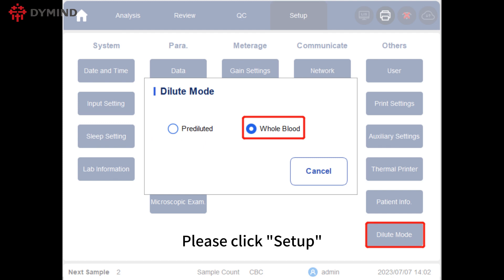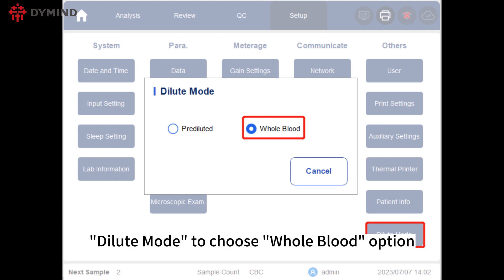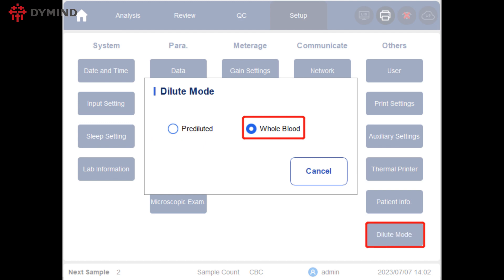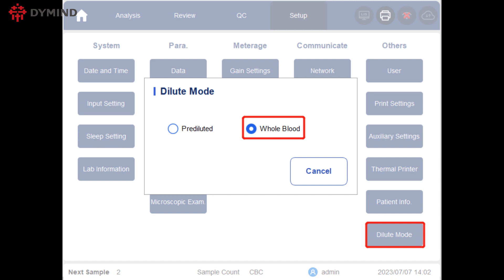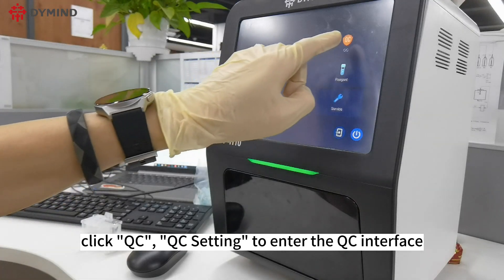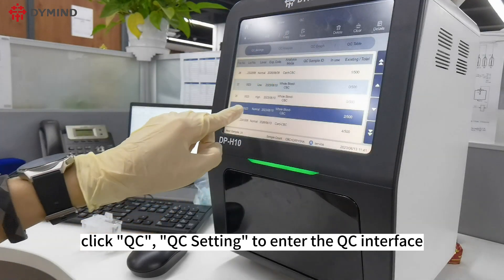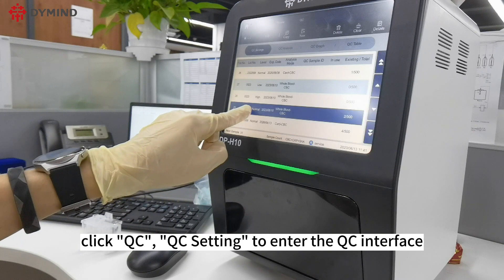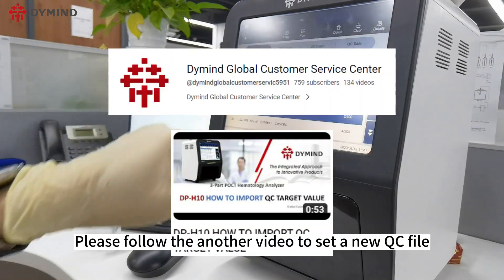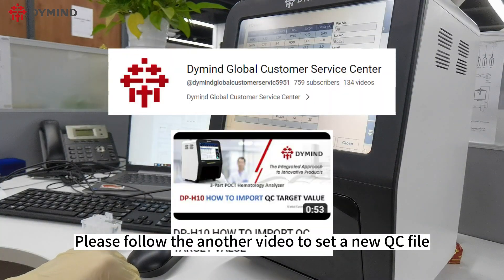Please click Setup, then Dilute Mode to choose the Whole Blood option. Then click QC, then QC Setting to enter the QC interface. Please follow the other video to set up a new QC file.